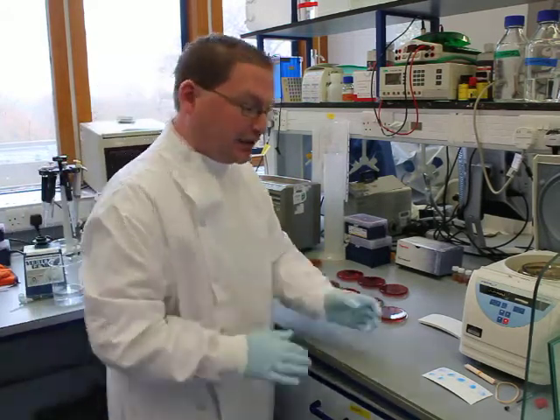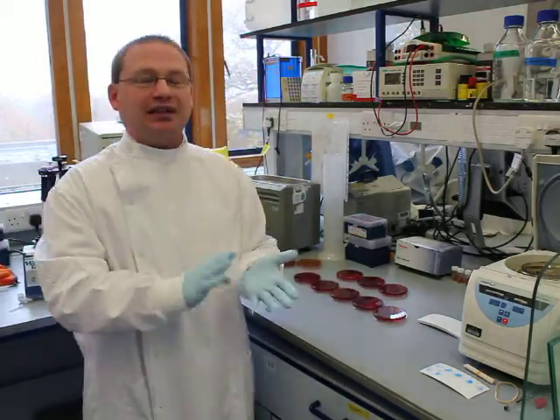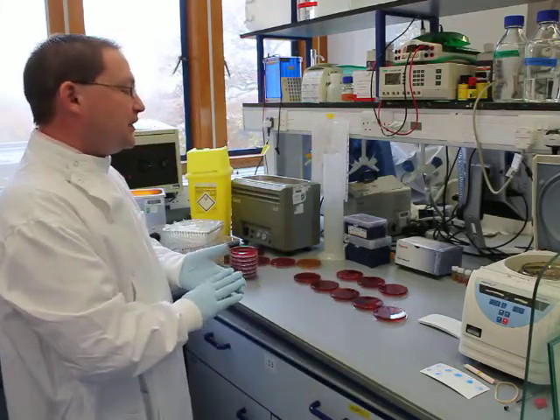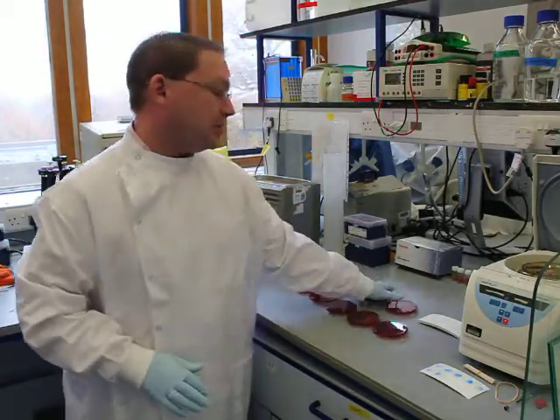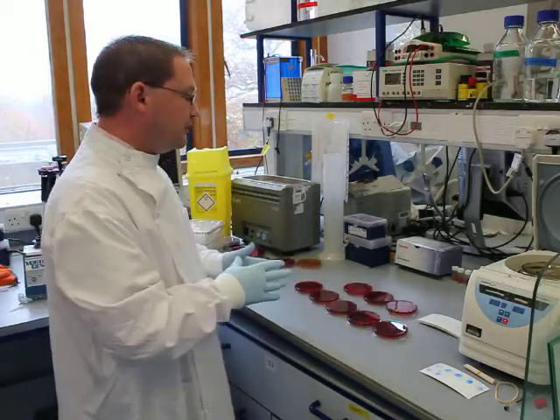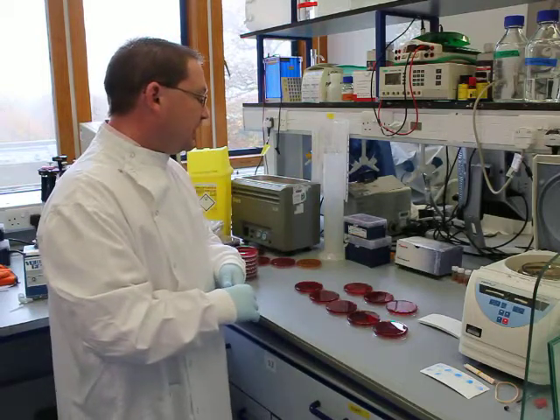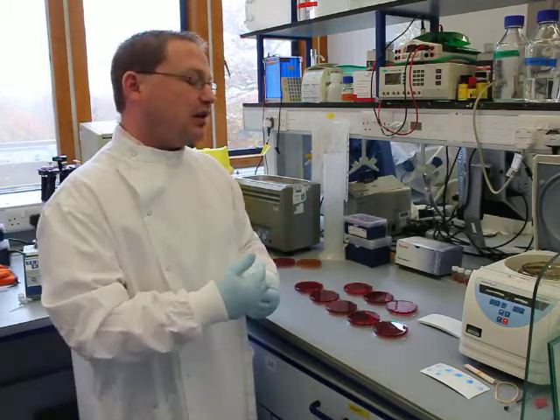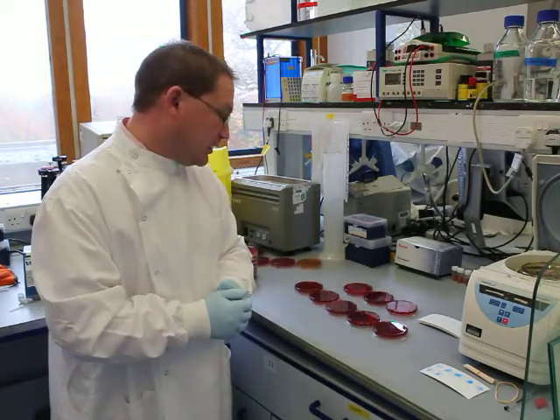Now we've done the latex agglutination tests, we have an indicator of whether the patient is carrying a Staphylococcus aureus or a coagulase-negative Staphylococcus. But to further aid our identification of which member of the medical staff is actually carrying the same strain as the patient, we've done antibiotic sensitivity testing on all the strains. By comparing different antibiotic sensitivity patterns, we will get an even clearer identity of which patient is carrying the infective strain.